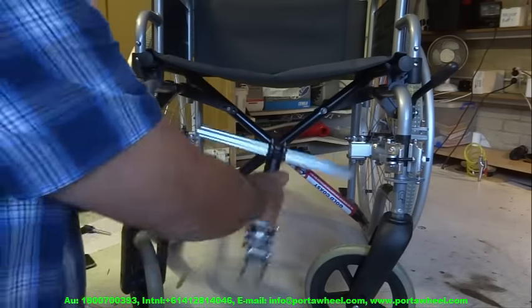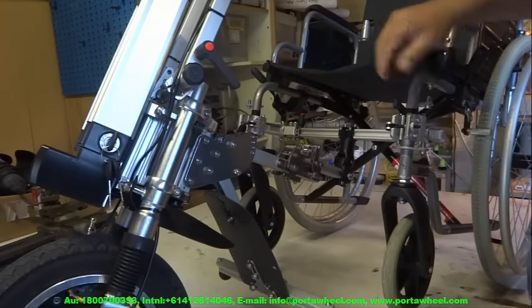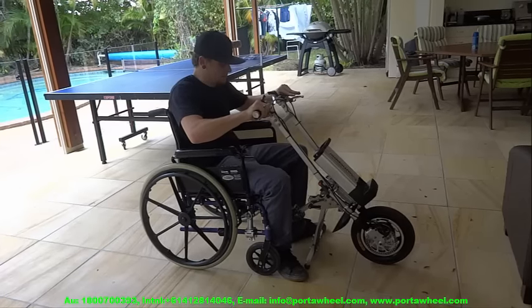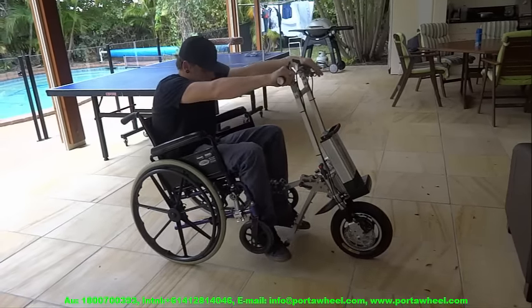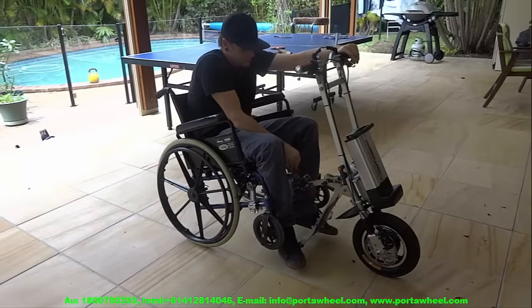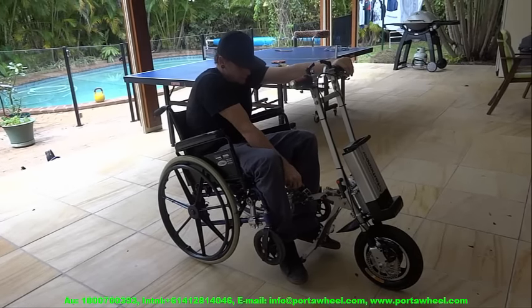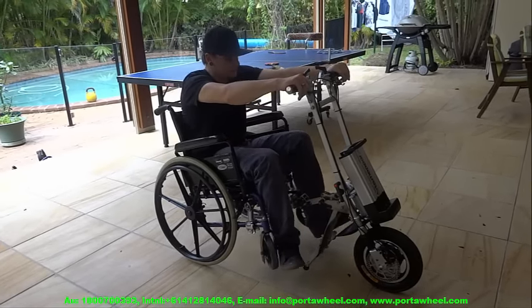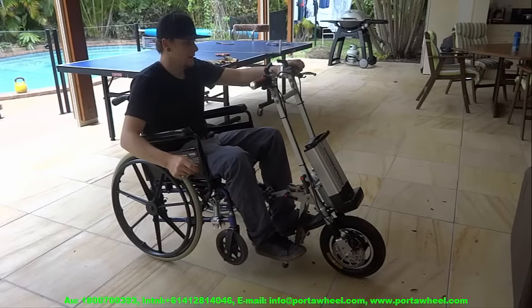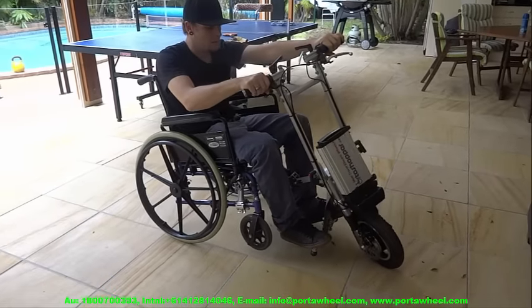It was crucial that you understand just how simple it is to connect the PortaWheel to your wheelchair. To hook it up, line your wheelchair so the latch on the wheelchair tow bar slots into the bottom slot of the PortaWheel tow hook, then put your wheelchair's brakes on. Switch the PortaWheel into reverse gear and push the handlebar forward while reversing slightly — the front casters lift up and the tow hook automatically and securely latches on. Then twirl and tighten the high tensile safety pin into the threaded hole and you are ready to go.